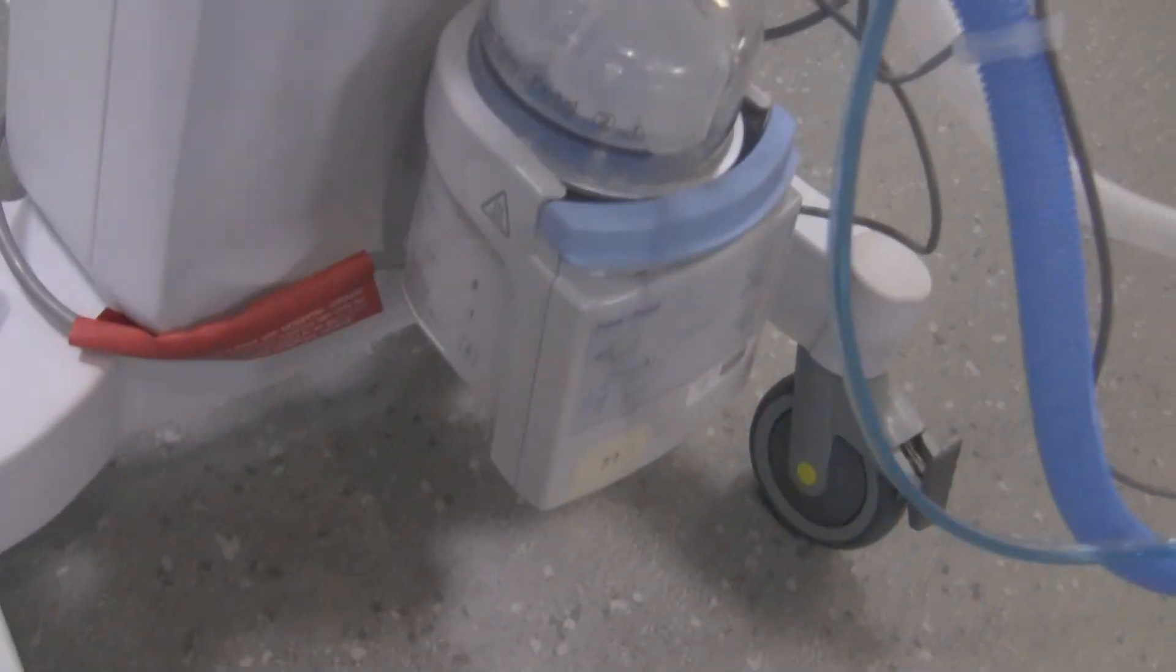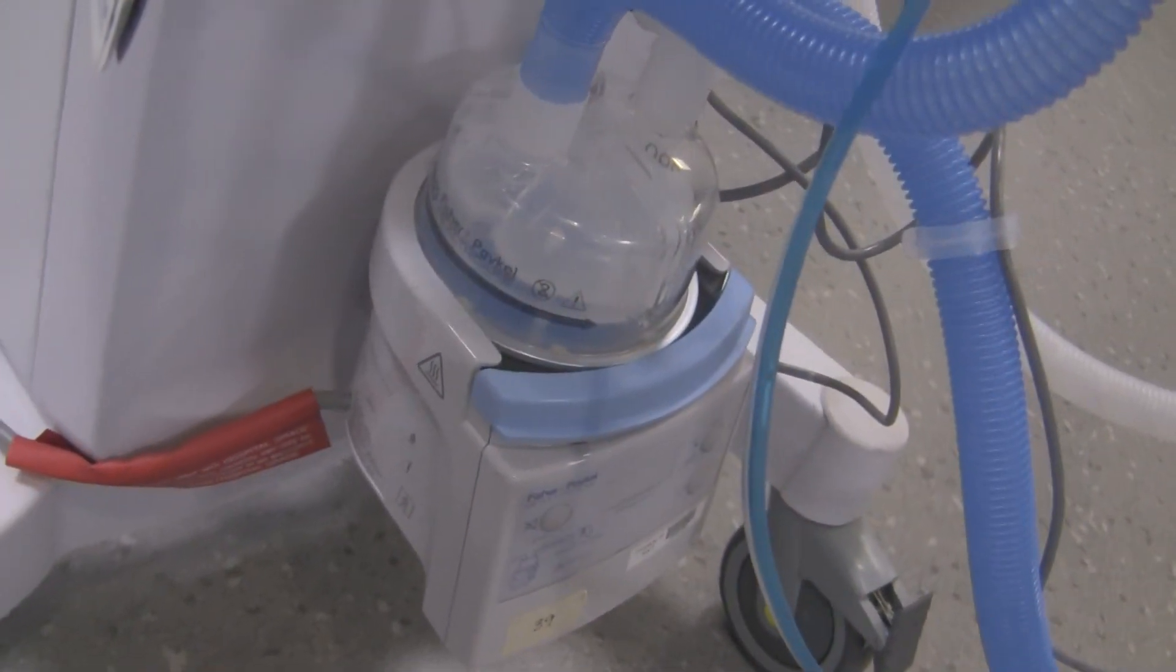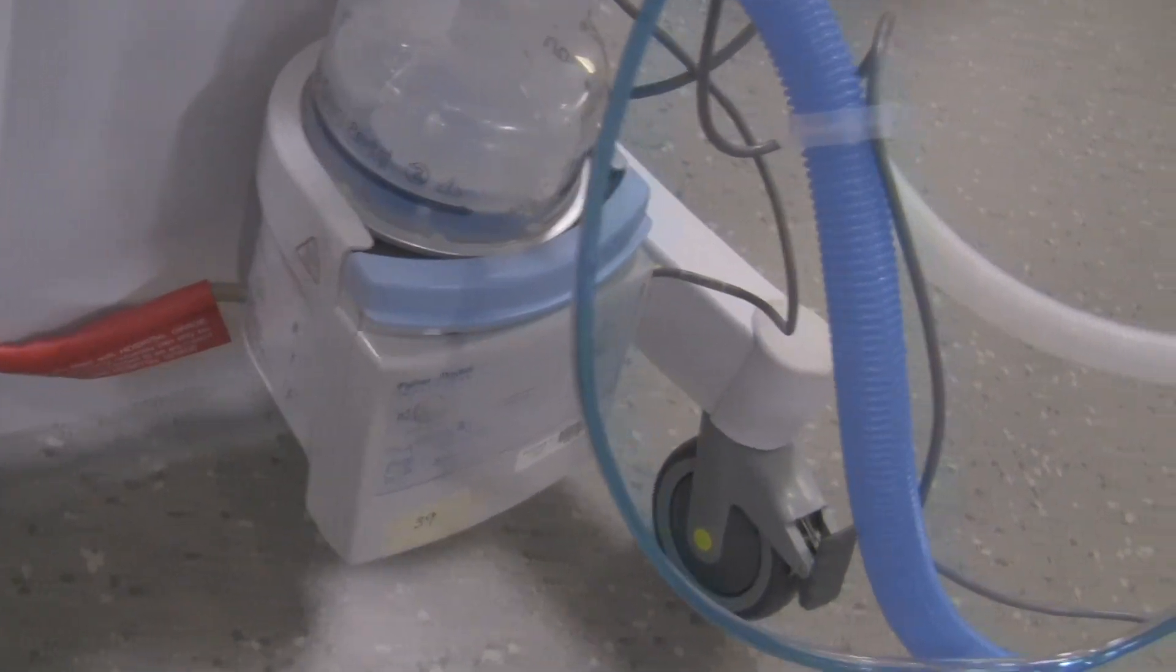Humidifier - you're going to have a humidifier to humidify the inspiratory gases or at least have an HME if you don't have humidifier. Locking wheels, so the wheel should be locked.